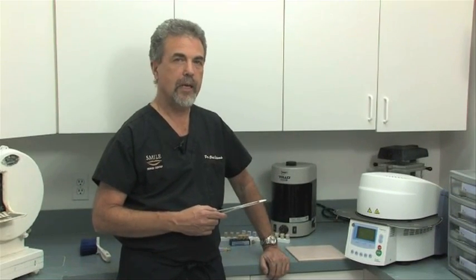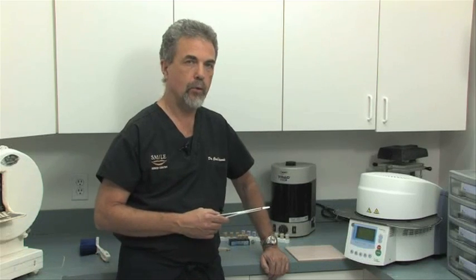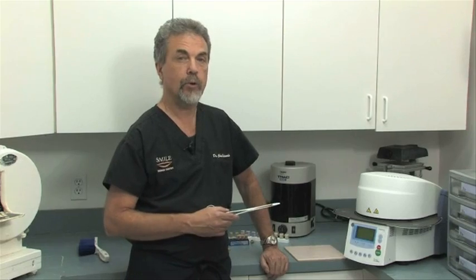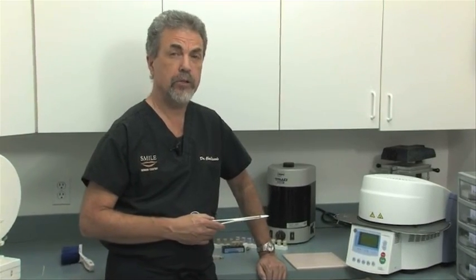We have just finished our curing or firing of our Emax crown, and it has now turned from blue to a beautiful tooth shade.